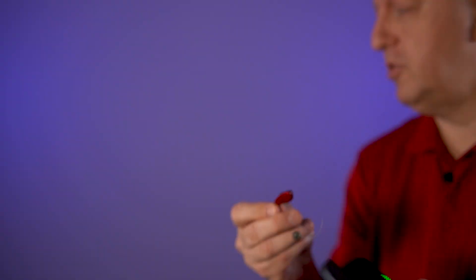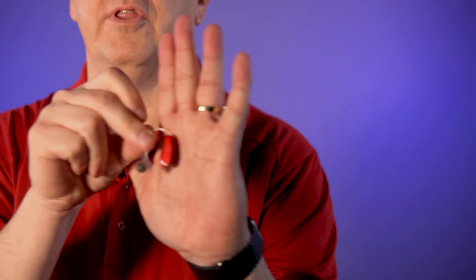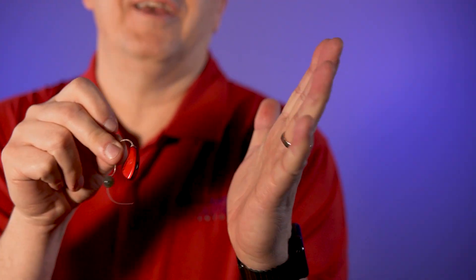Along with that, it's pretty easy to put in. The hearing aids also have moisture control inside. Because people sweat, I didn't just believe the manufacturers on this — I want to see it myself. So I took my hearing aids out and I would work out with them. I sweat profusely and I'd even go play basketball and listen to my phone through them. I'll show you a little about that streaming ability in just a second.